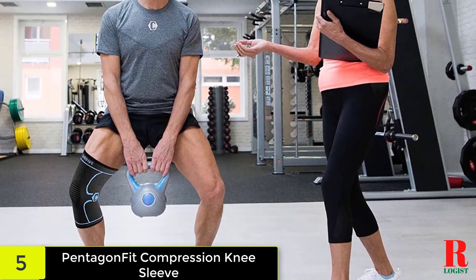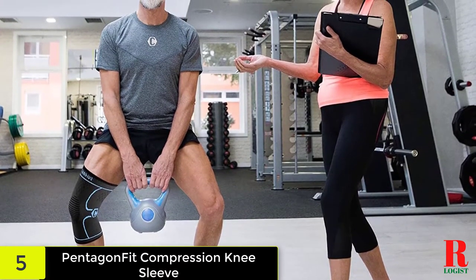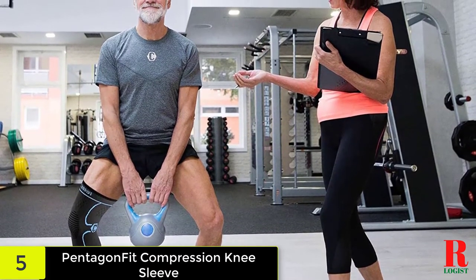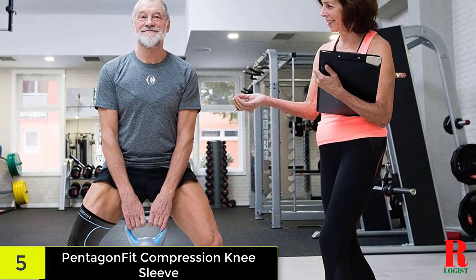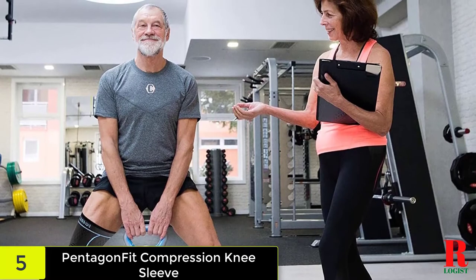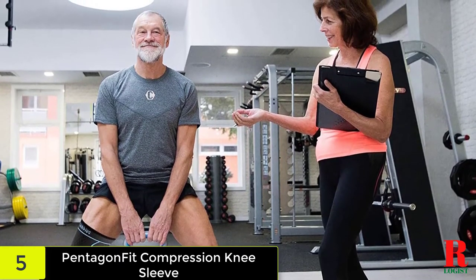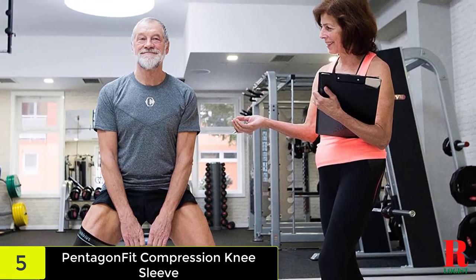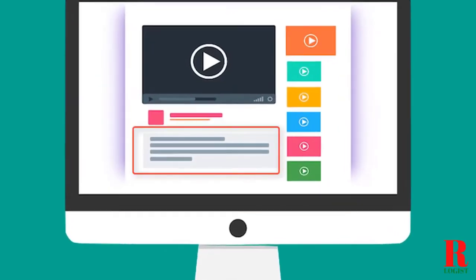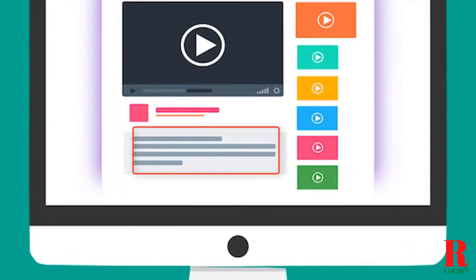With chronic pain, it is vital to choose a product that relieves discomfort. If you continue to use your knee with hyperextension, you can cause permanent damage. Even simple tasks of standing up or walking around your home can cause excruciating pain. Protect your knees and relieve any harmful effects with the Pentagon Fit Knee Brace. Check out the description for more information about this product and the latest price.